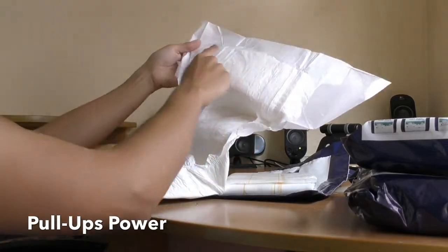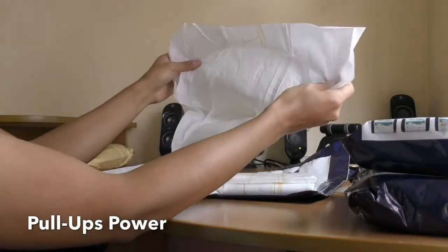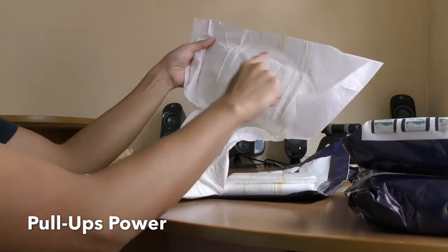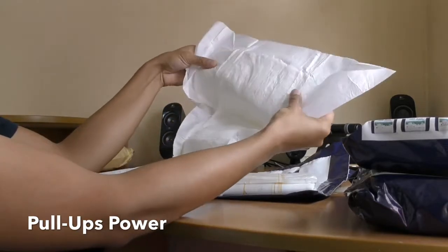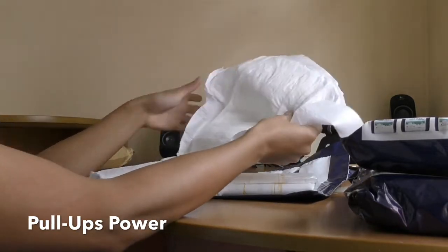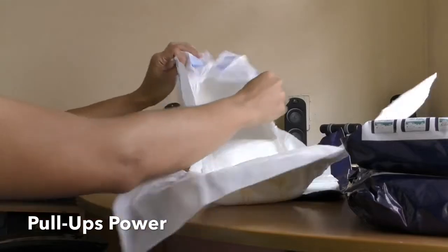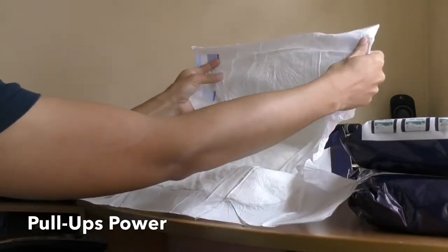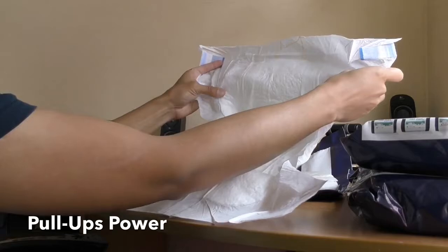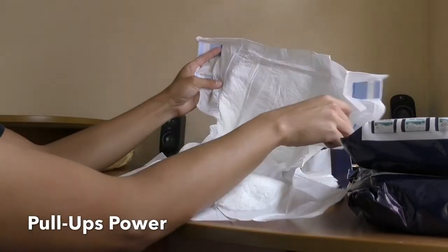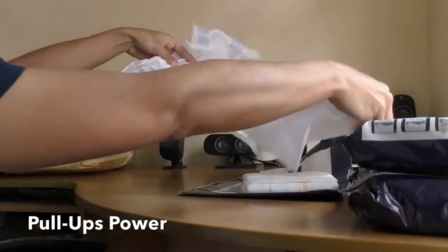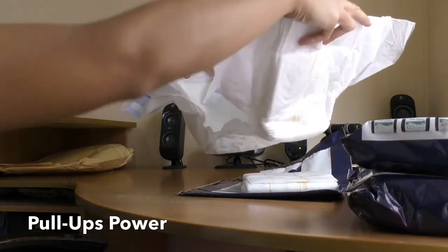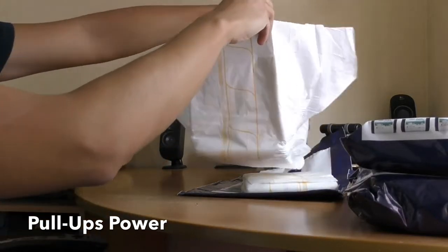It has padding, D-shaped padding. I love this extension. This is the back. More padding here. Great size. Perfect.